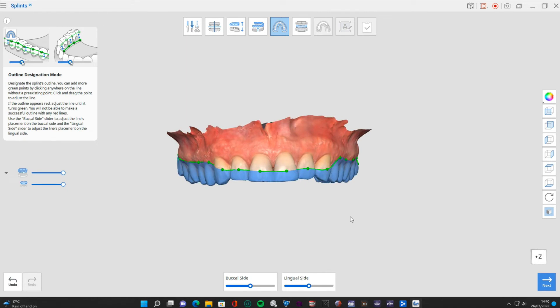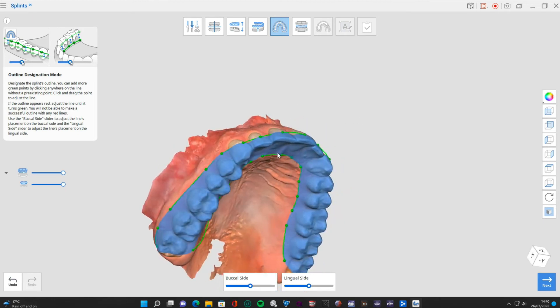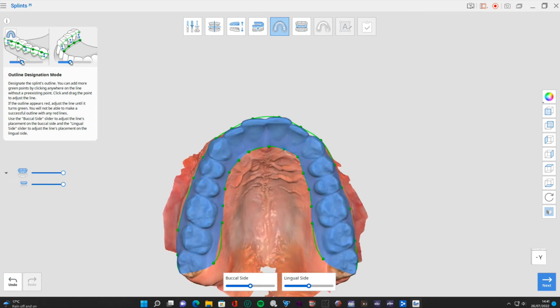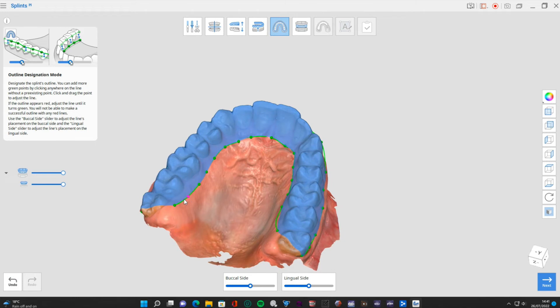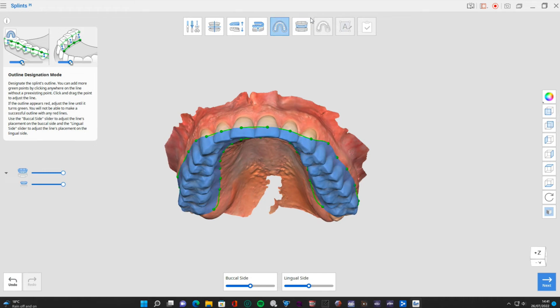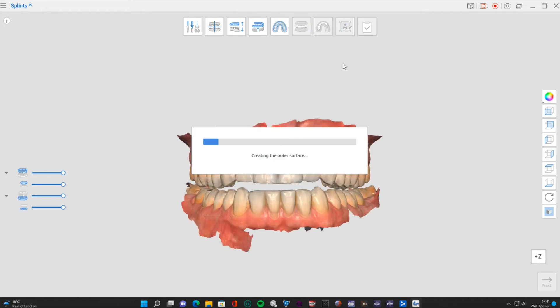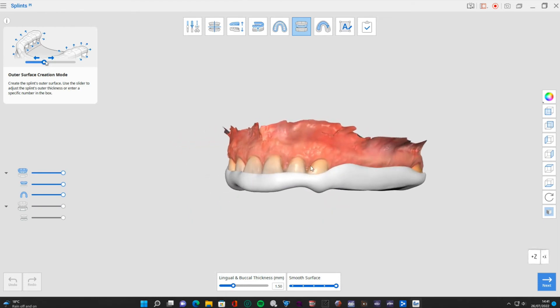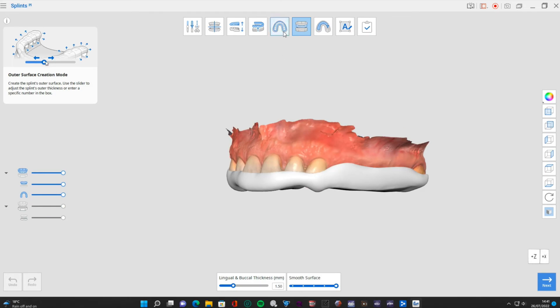That's just my preference - you might prefer to keep it running along the buccal surface of the teeth. You can add more green points by clicking anywhere on the line to get another point you can then manipulate. Let's go to the next stage - it's going to create the outer surface using that outline I've made, extruding it with the thickness we set before. A little bit more coverage and thickness than the AI tool originally gave it. I'll just go back slightly to cover one area a bit more.